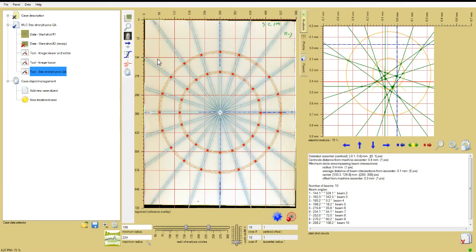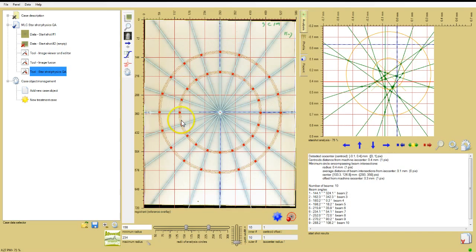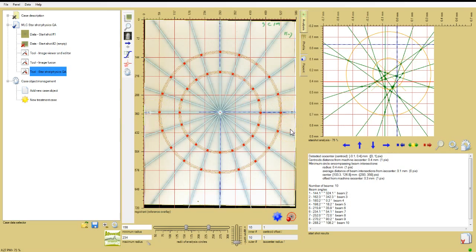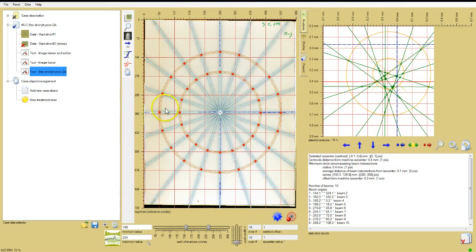Depending on the properties of the Starshot image, the analysis could be refined in three ways. The first concerns the radius of the analysis circles. In general, the larger circle should extend almost to the end of the beam lines, but not past the fiducial marks. In the Gantry Starshot, the beam lines extend to the film edge, so the larger circle could be 15 centimeters or more.